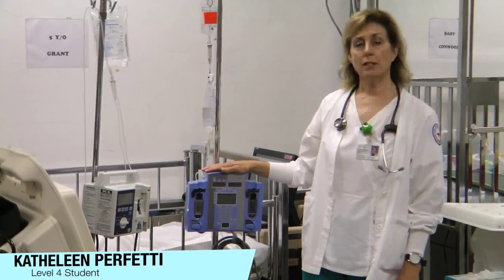I hope this has helped orient you to the Kingwood College Hospital medication dispensing.